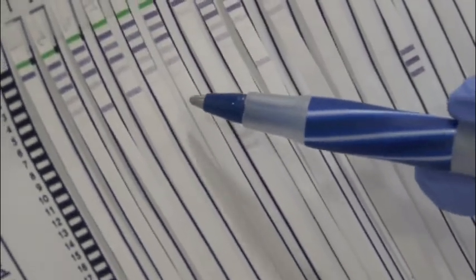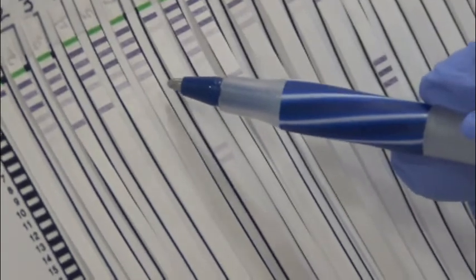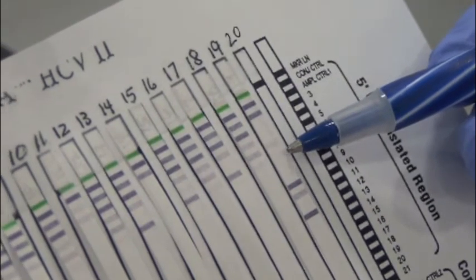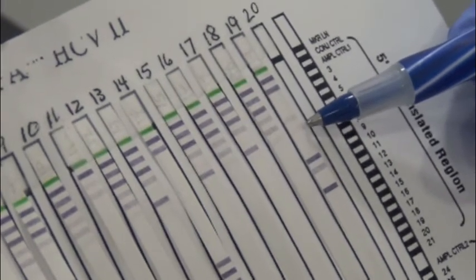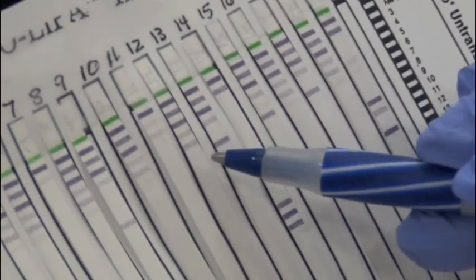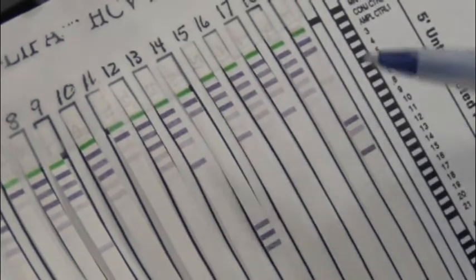This has a few light bands down here. I'm going to wait a little bit. They may dry. You can see these really faint bands here. This is the band right here, the number 6 band that we're going to call positive. If it's that intensity, and you can see it's very faint, if it's that intensity or greater, it's positive. If it's less than that, then we aren't going to consider it positive. Here's one that's slightly less here. This one would be 1, 2, 3, 4, 5. You can see there's a very, very faint one there. So number 12 is going to be 1, 2, 3, 4, 5.